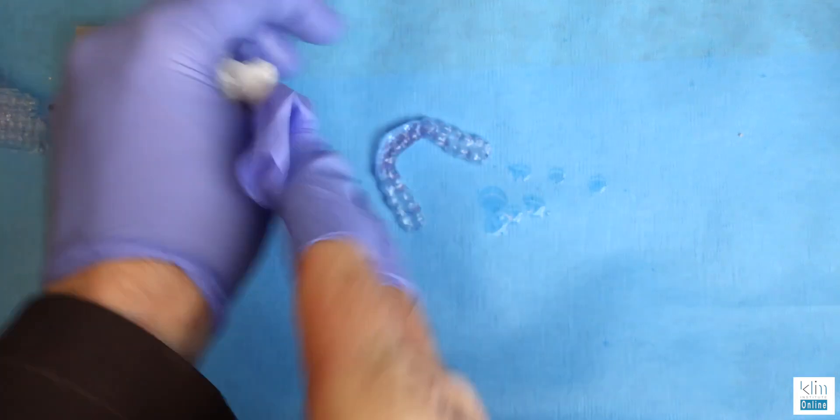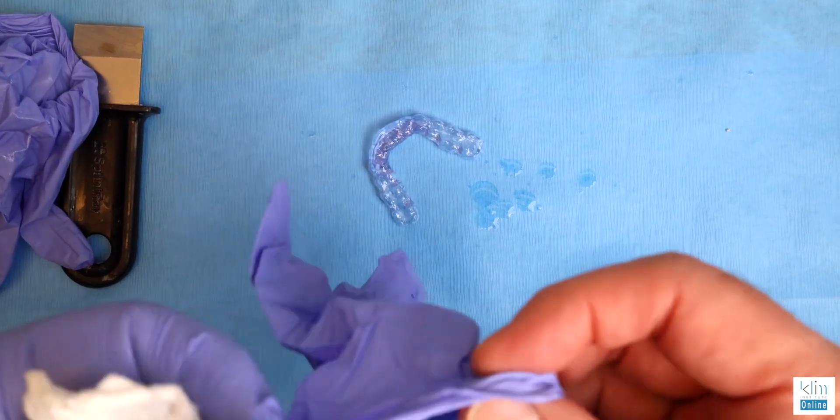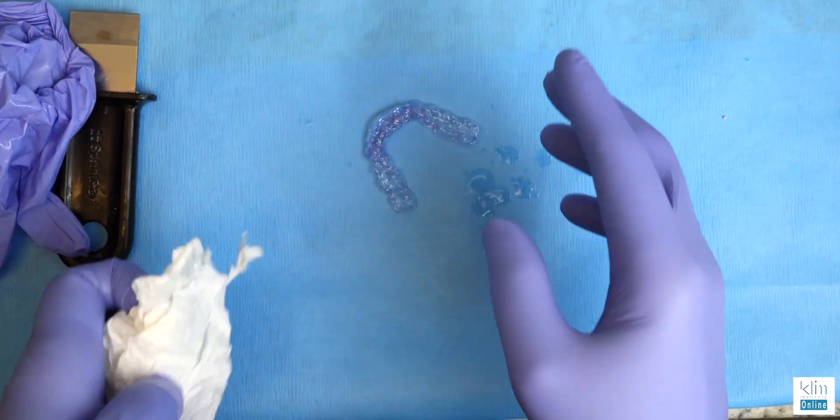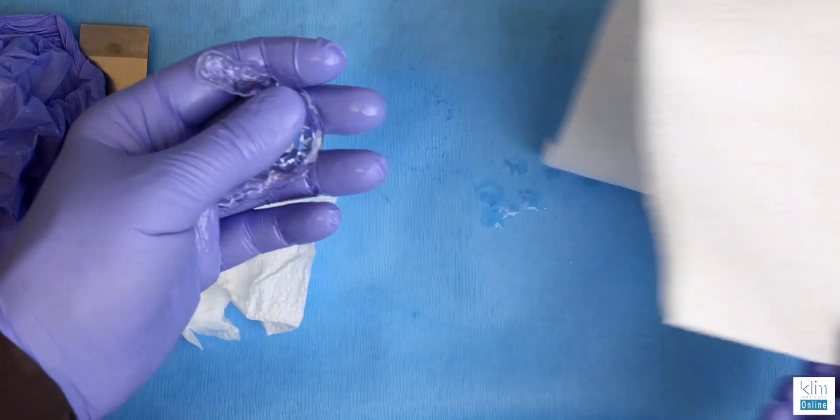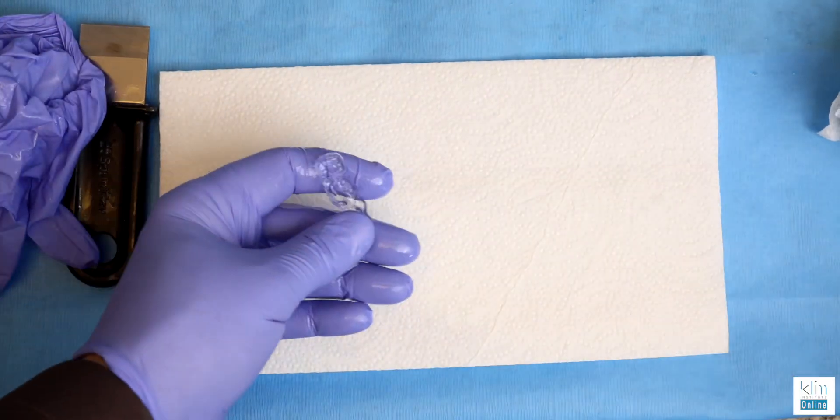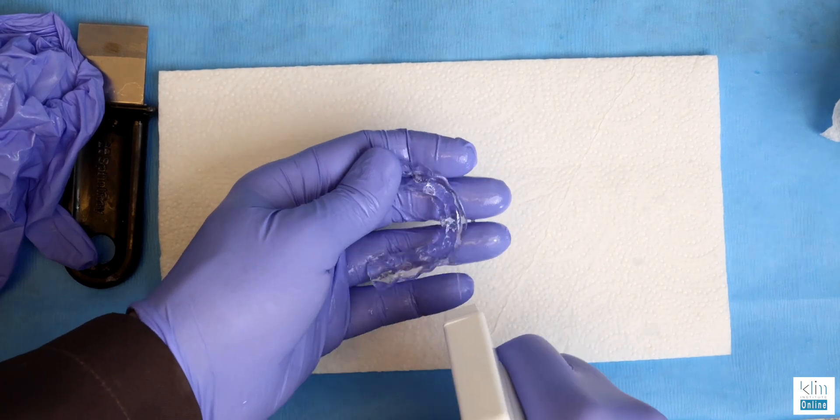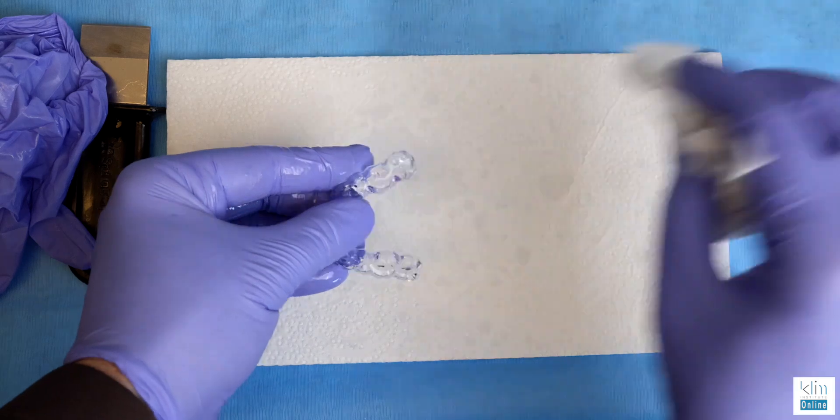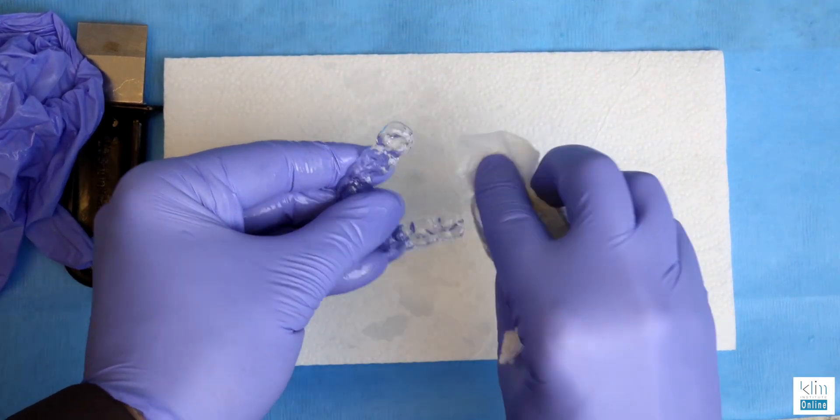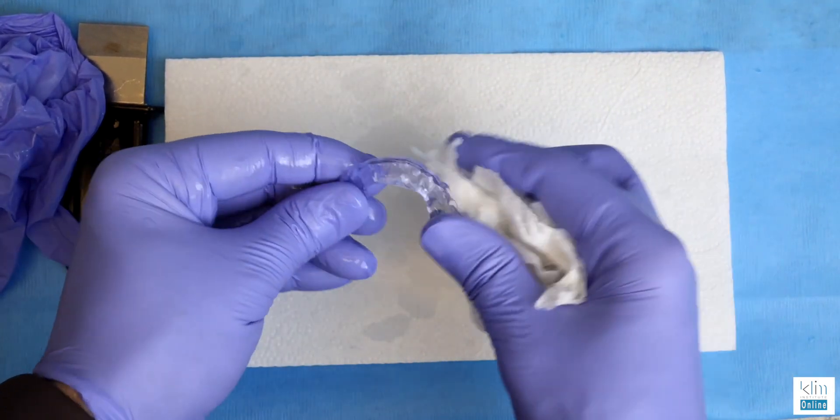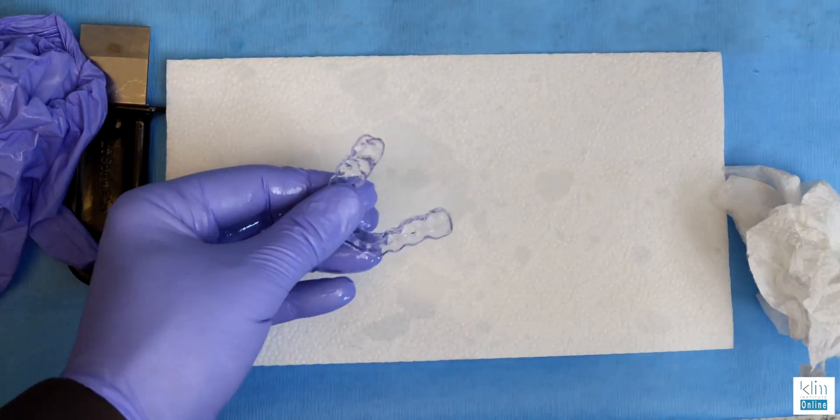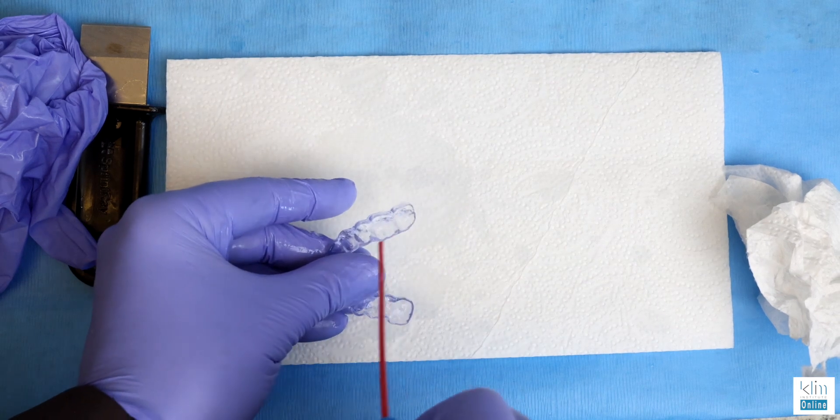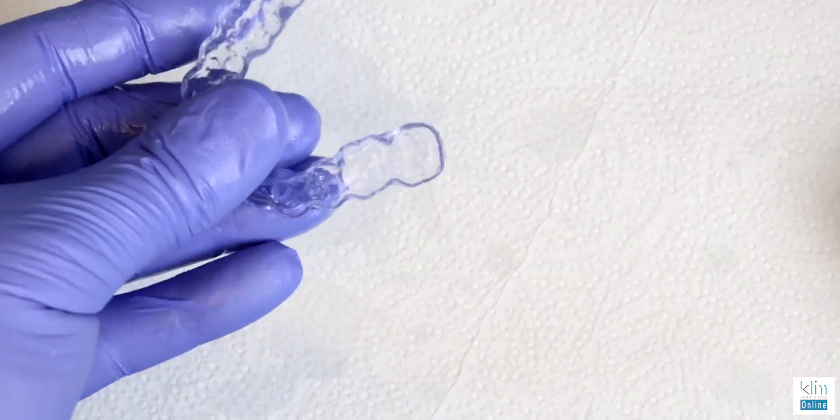Before the initial cleaning, I want to remove my right glove. I'm going to hold the spray bottle with that glove, and I don't want to get uncured resin on my spray bottle handle. So here we're going to spray and clean. This is alcohol, and I mentioned 91 to 99%. Use high-intensity air that blows out the alcohol and resin combo, and do that twice, cleaning the internal and the external.